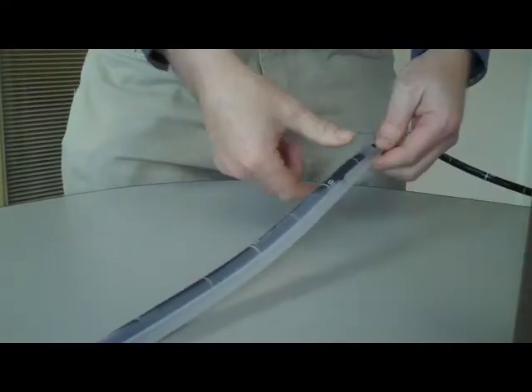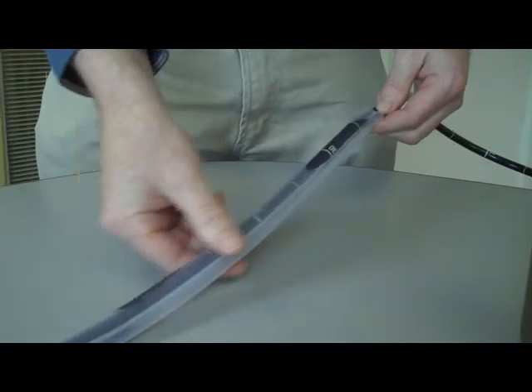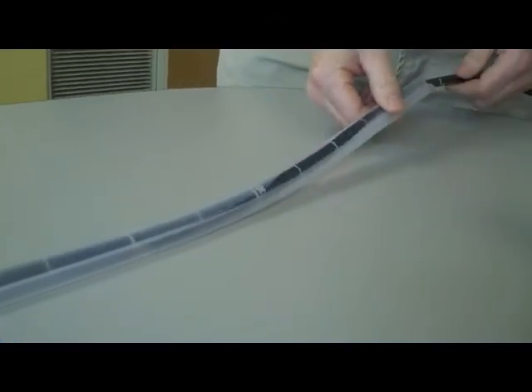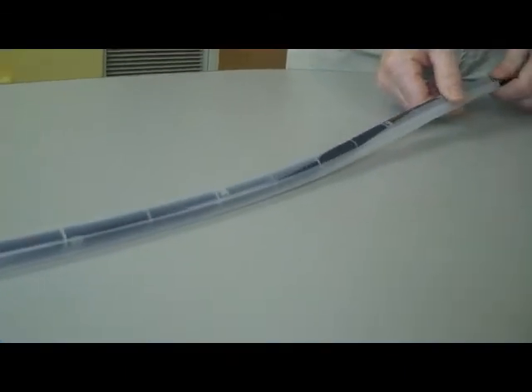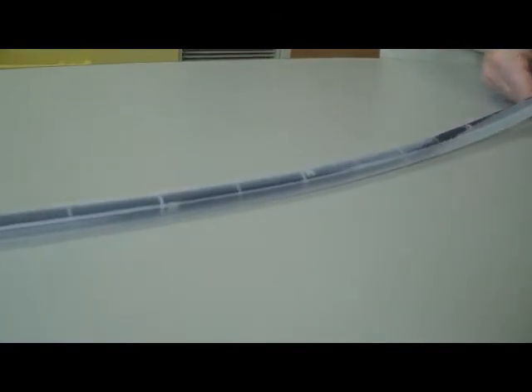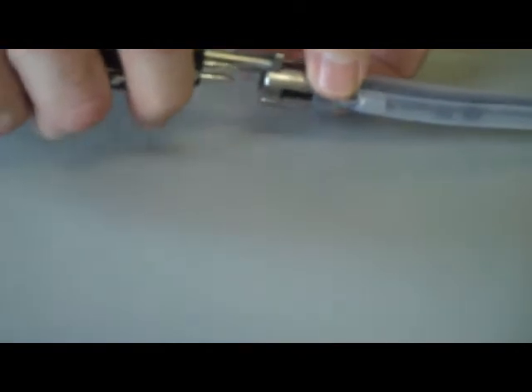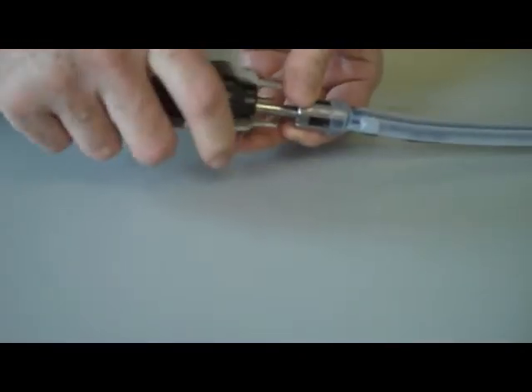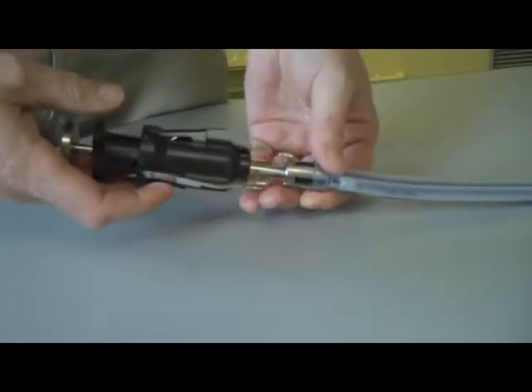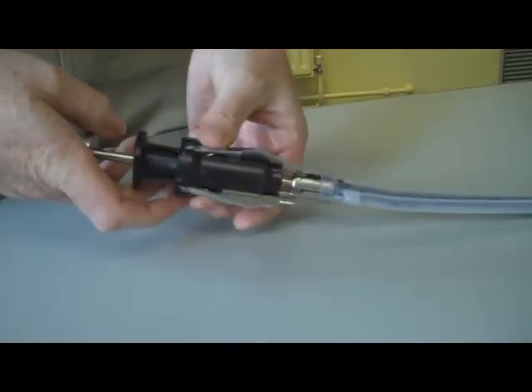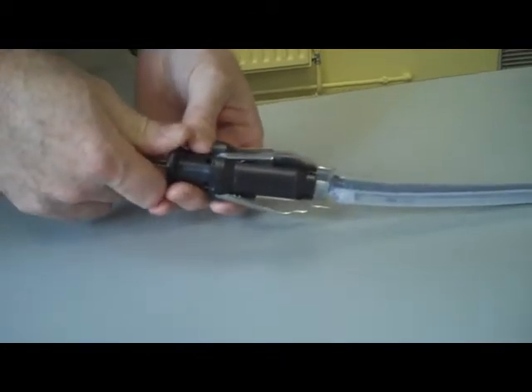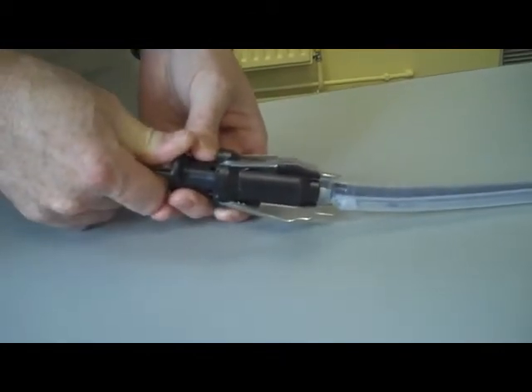Push the endoscope until it pushes up against the support ring at the bottom. When in place, the support ring can be removed. This is done by connecting the mounting tool and pushing on the mounting tool, which will release the support ring.